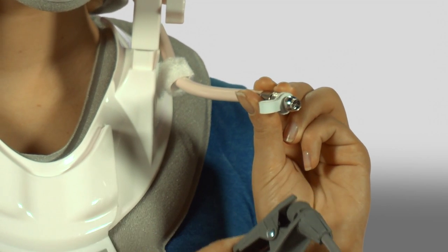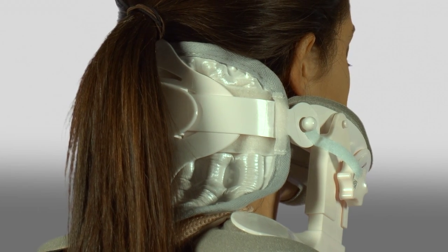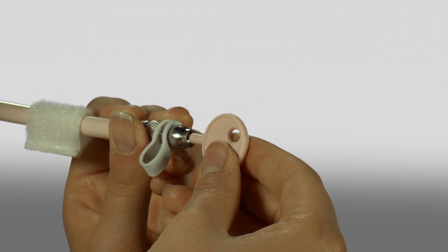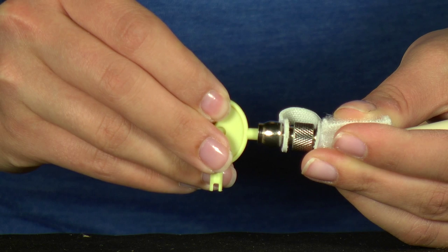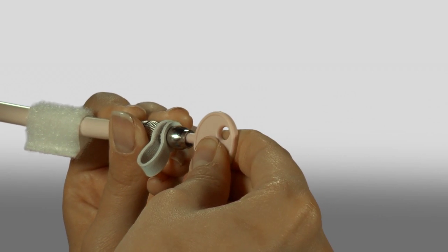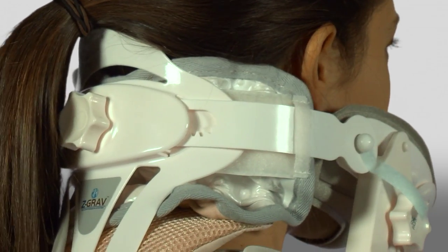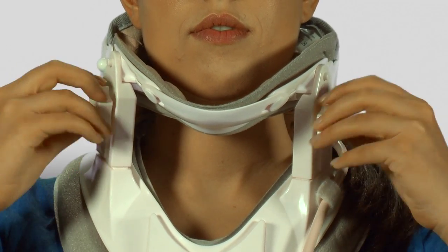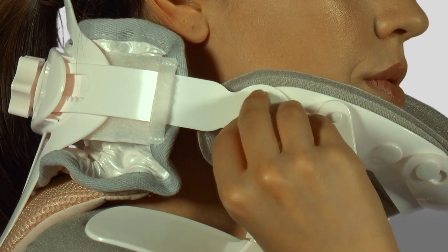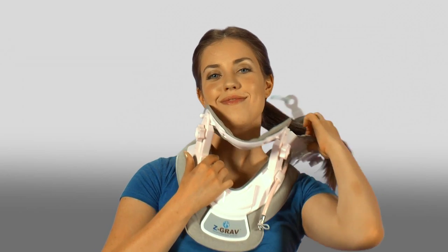You may then release the clip from the inflation tube. For quick release and exit, simply pull the tab on the right and the collar is removed from the left. Quick removal can occur in as little as 2 seconds. The preferred way to exit the collar is: 1. Release the air from the BodyJack air columns by using the valve release key provided. Note that one key is flat and the other is specifically designed for tightening the valve stem. Use the flat key to apply pressure on the valve stem to release air. 2. Rotate the rear knob to the left to reduce pressure. 3. Rotate the pillar knobs backwards to lower the collar. 4. Release the plastic tab on the right off of the round projection on the side of the front component. 5. Gently remove the open collar on the left side.